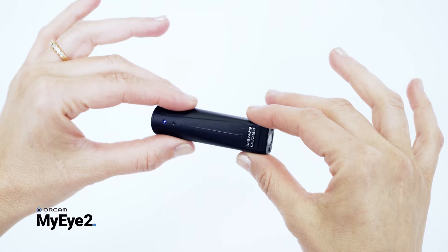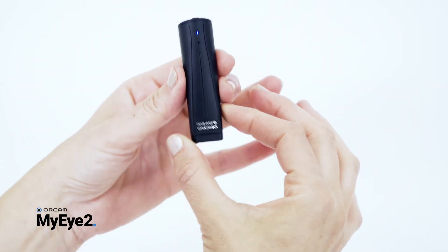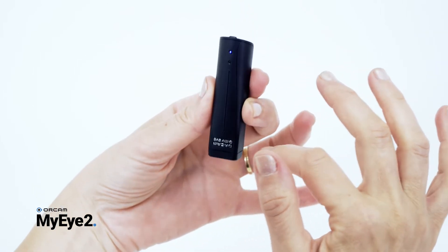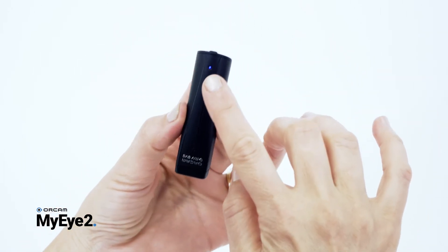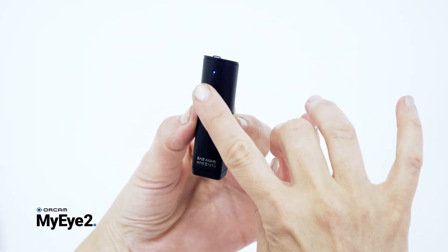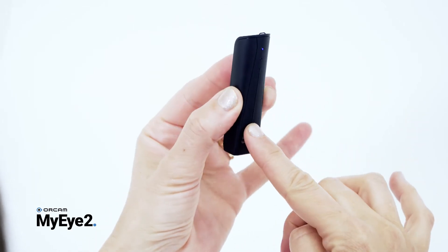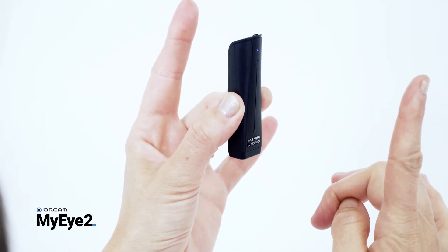To enter the Audio Settings menu, hold the narrow sides of your device, with the touch bar facing you and the camera facing down. Simultaneously press and hold the power button with your pointing finger, while with your other pointing finger, swipe the touch bar from top to bottom. Release the power button when your finger reaches the bottom of the touch bar.